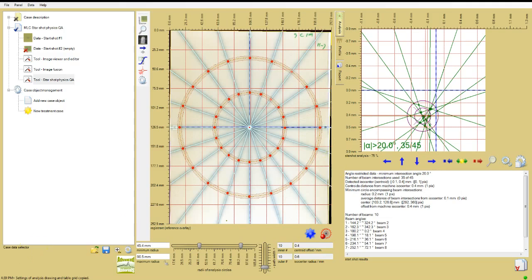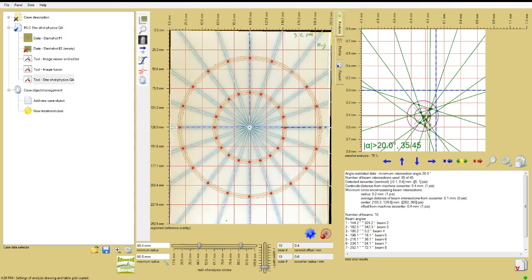For example, consider the search for response minima and maxima along the sections of the analysis paths. If the doses are too low, then pixel noise in the image could result in detection of false minima and maxima. So stick to the protocol and no changes will be needed to the default settings of any of the other parameters to compensate for pixel noise.